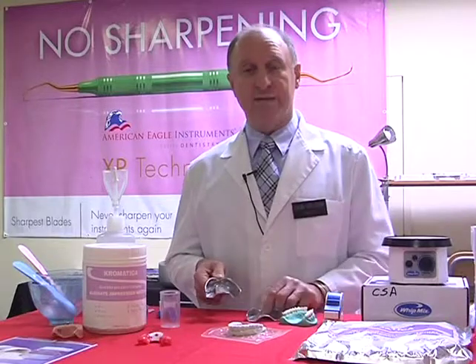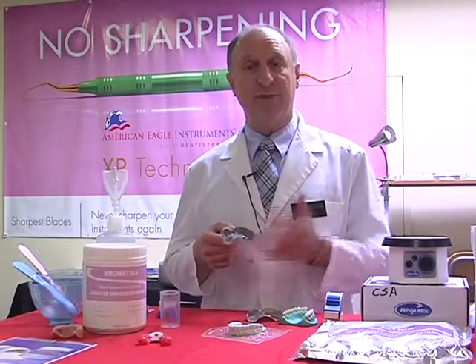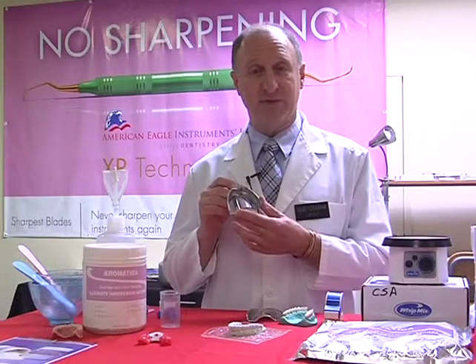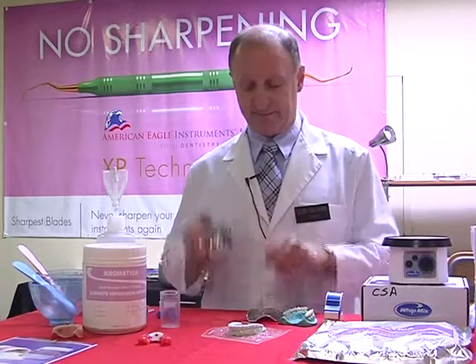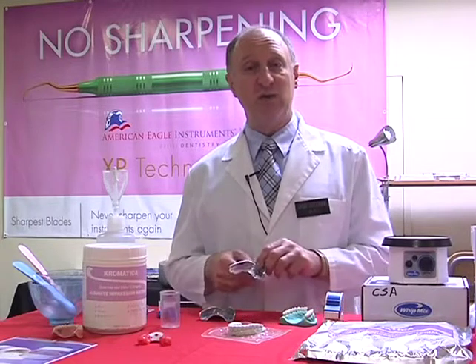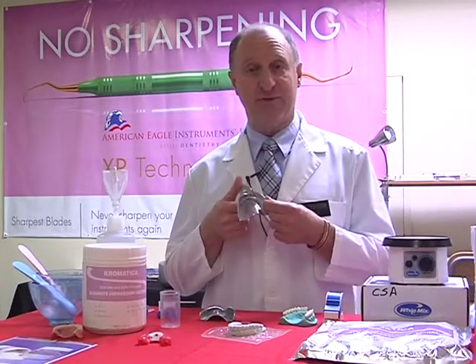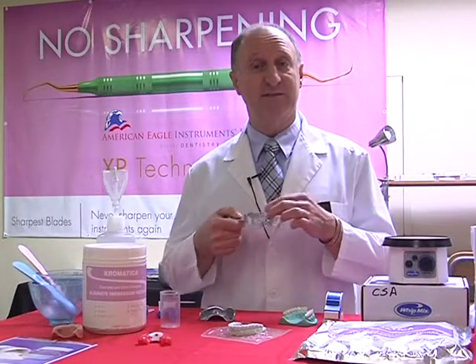So with our choice being for a regular dentition, with all the teeth being there, we want to have a mucocompressive impression. The solid tray is our choice. When we have partial or edentulous cases, we should be using our perforated trays because we don't want to compress soft, flabby tissues.